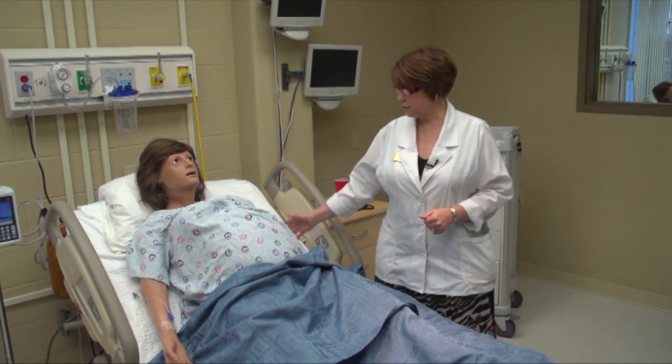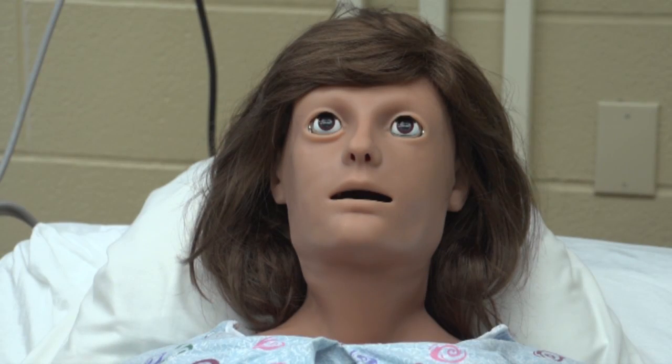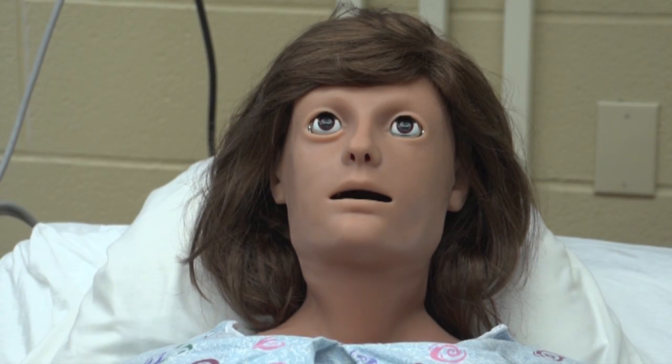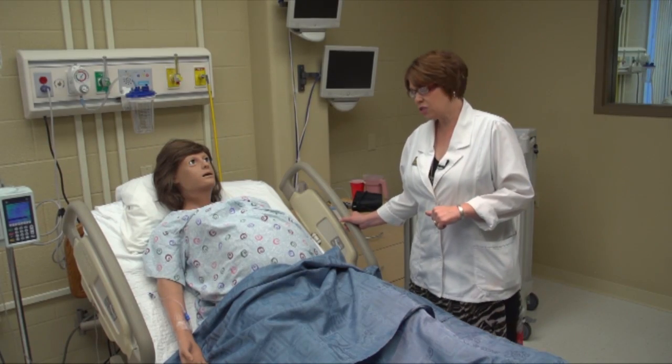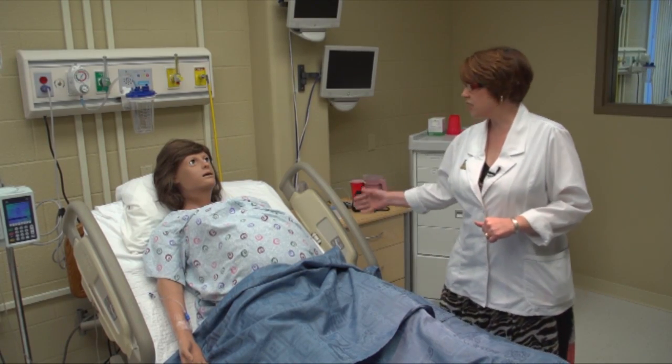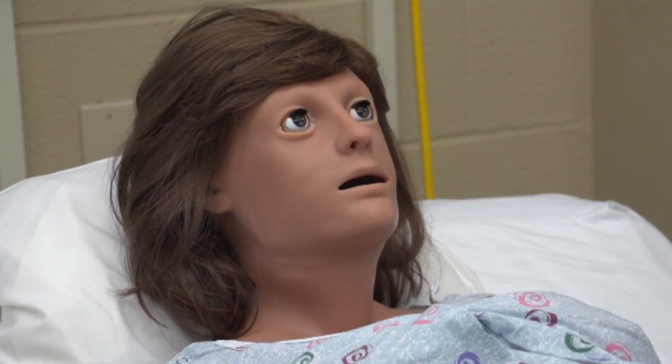This is our newest family member. Her name is Victoria. She's our birthing simulator. Some of the things that she can do for us — she blinks and she responds to questions.